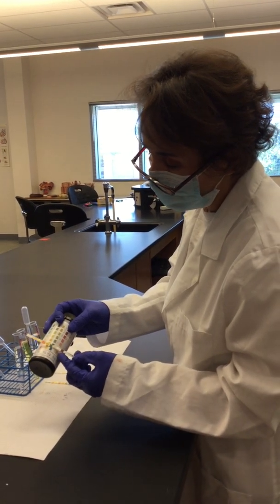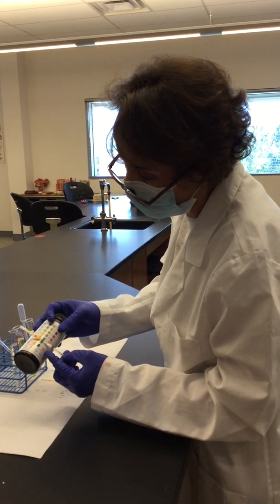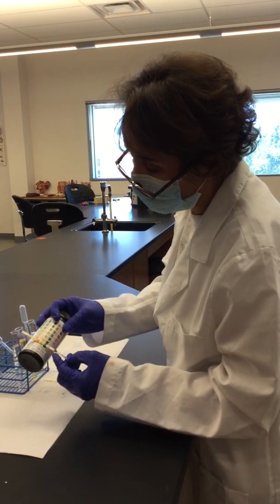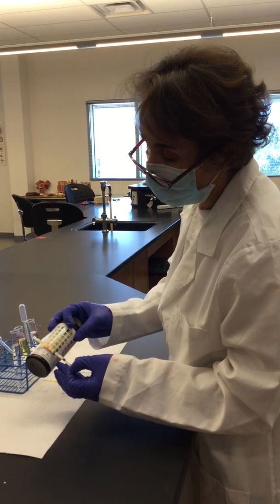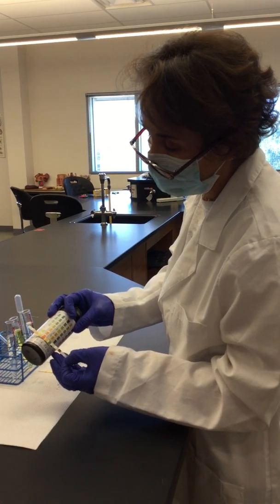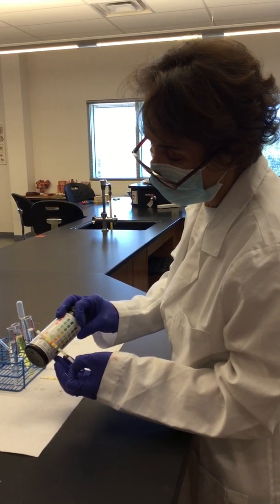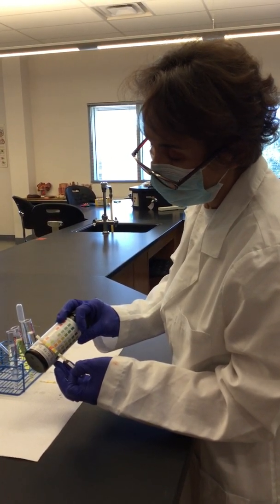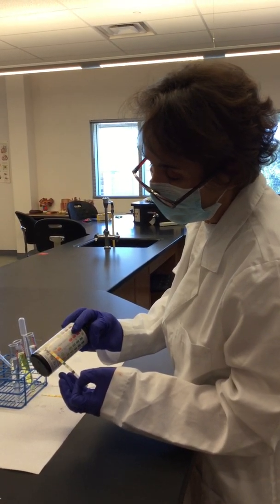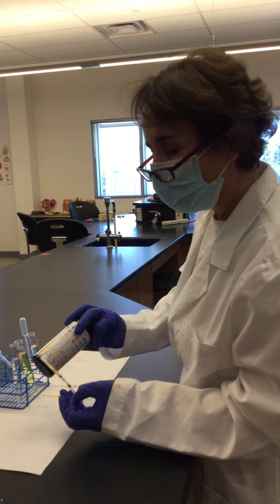And now for the next one, specific gravity. It's 1.005, so it's normal. Traces of blood, you don't see it, so it's negative. That's good because that means this person's sample doesn't have blood, so possibly there's no damage still to the kidneys. pH is 5, so that's good, it's acidic. And for proteins, it's negative, so that means as well that the kidneys are functioning well. There is no glomerulonephritis. Urobilinogen is normal, 0.2, and negative for nitrites and negative for leukocytes.